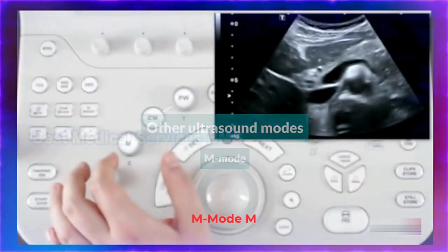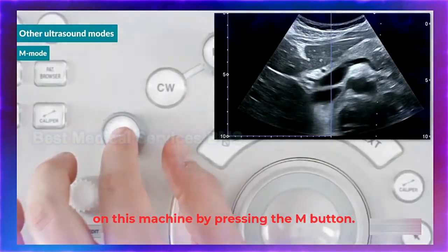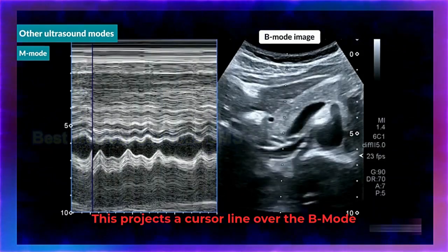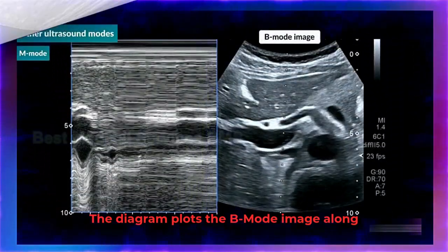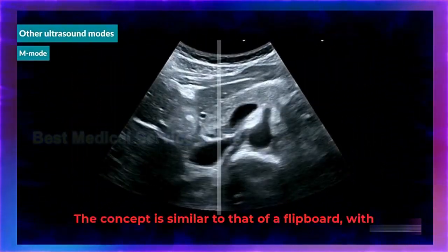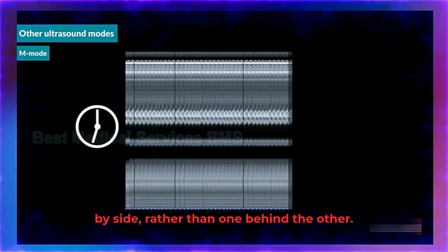M mode. M mode stands for motion mode and is activated on this machine by pressing the M button. This projects a cursor line over the B mode image and brings up a diagram, seen here on the left side. The diagram plots the B mode image along the cursor line over time. The concept is similar to that of a flip book, with the difference that the images are displayed side by side rather than one behind the other.